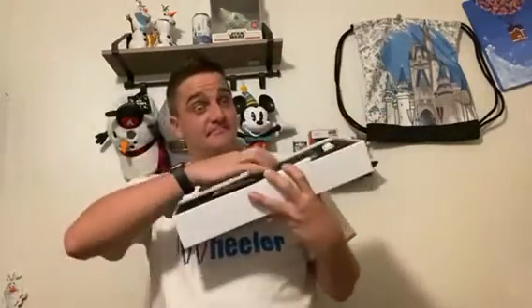The device comes in a nice little styrofoam box that holds everything in place, with styrofoam on the lid as well. The first thing I'm pulling out is the extendable cane itself — it's a nice sturdy collapsible cane. It has a marshmallow tip, which I'm personally not a big fan of, so you won't be seeing this tip in later episodes. There is also a little screw piece that attaches the WeWalk handle onto the cane.